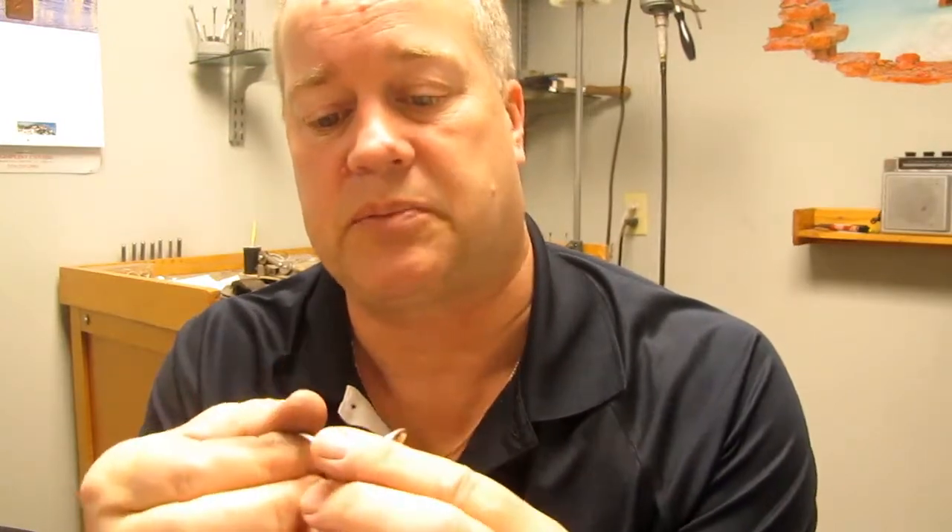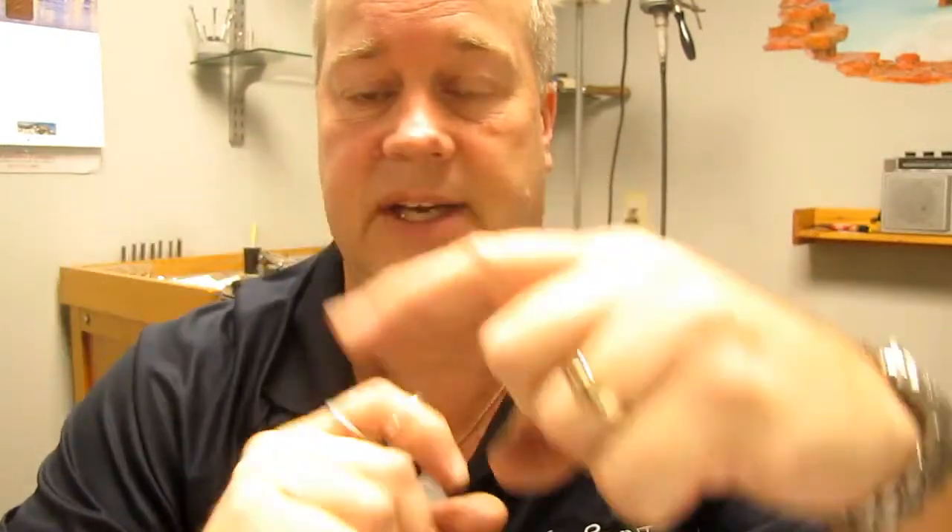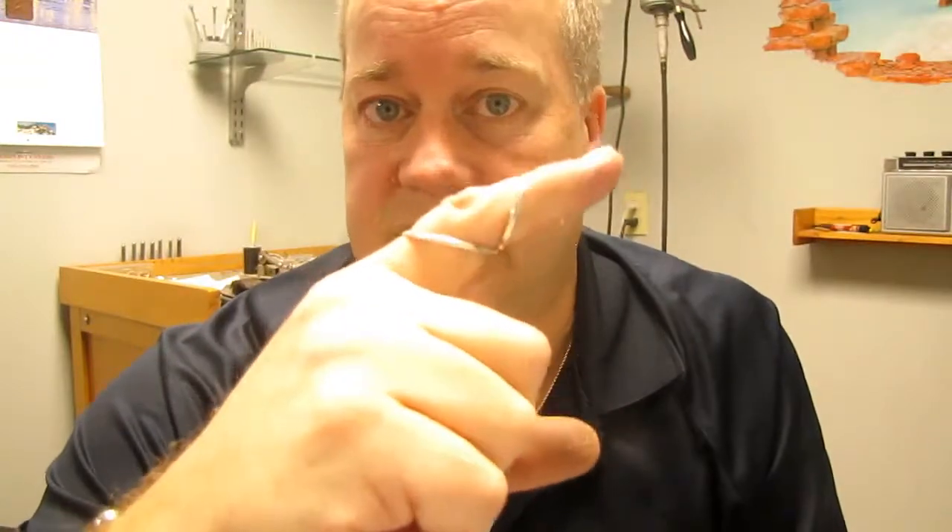One version is very simple — basically two oval elliptical rings with flat surfaces on pressure points to hold your finger into position, and it's worn like this. With EDS you deal with hypermobility; you can dislocate, you can hyperextend, and there's quite a bit of pain involved. What we do is hold the finger in a slightly flexed position — neutral or about five degrees of flexion is perfect. This splint does that by working with three points of pressure: distal, proximal, and right underneath the joint, allowing full flexion while stopping hypermobility.